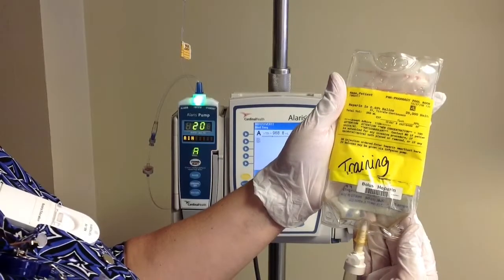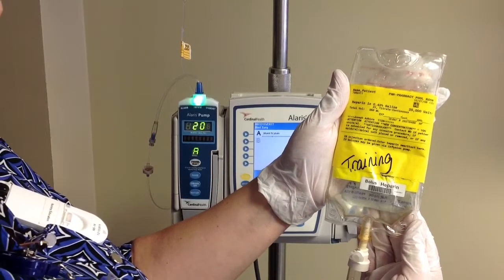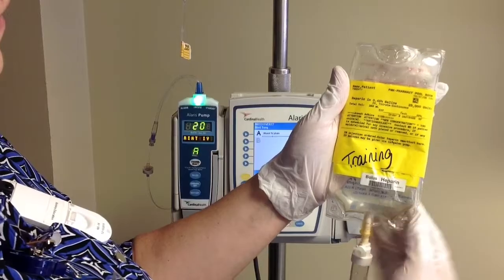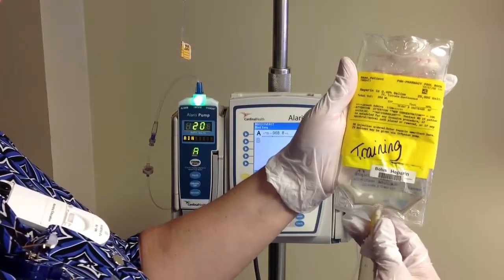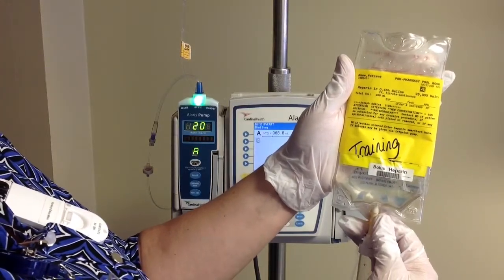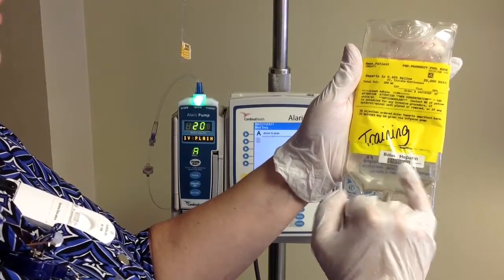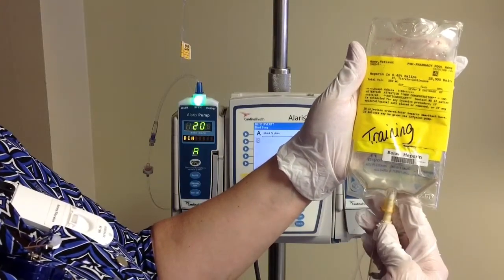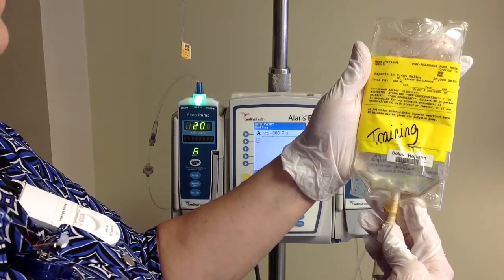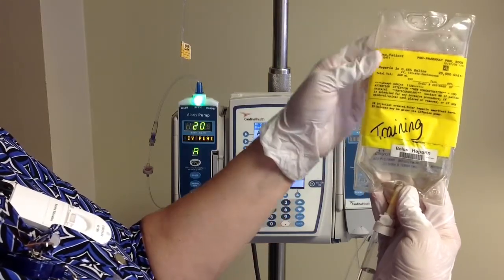Before we hang our heparin, let's take a quick look at the anatomy of the bag. Up in the upper right-hand corner is your 2D barcode that you're going to use for scanning your continuous infusion. Along the bottom of the bag there is our bolus barcode scanner, and you're going to use that for any of the PRN boluses that you're going to give.